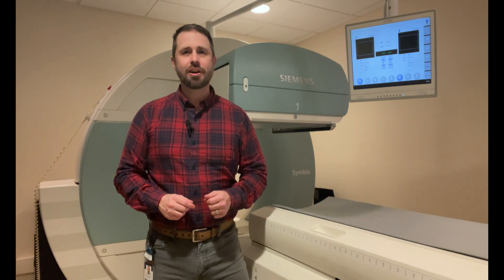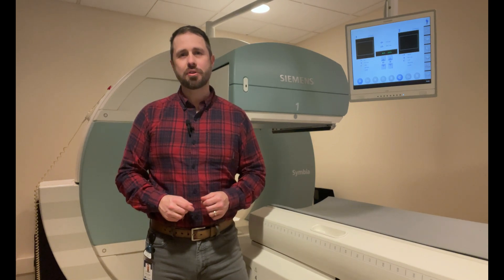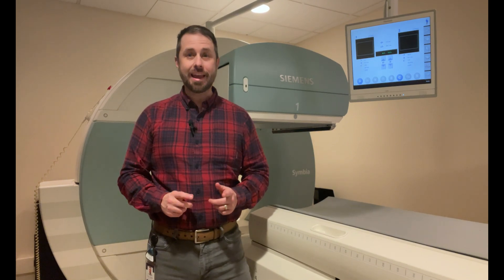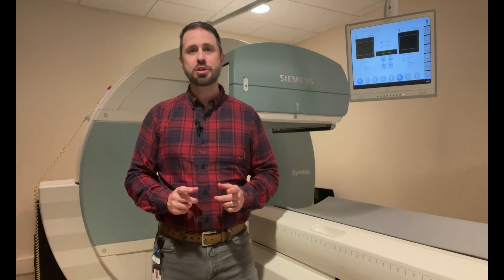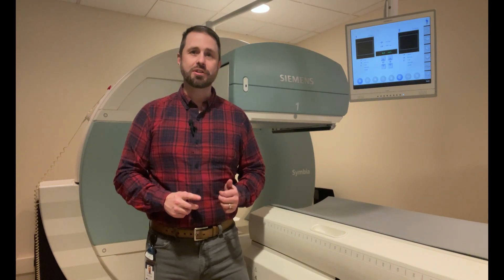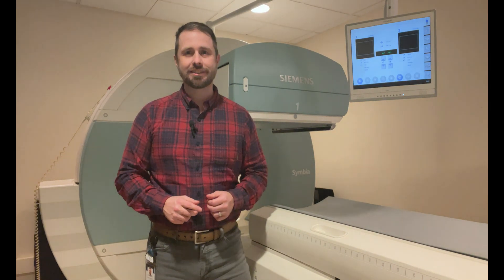Hey, what's going on? This is Eric with Olympic Health Physics, and today we're going to be showing you how to do an extrinsic flood.